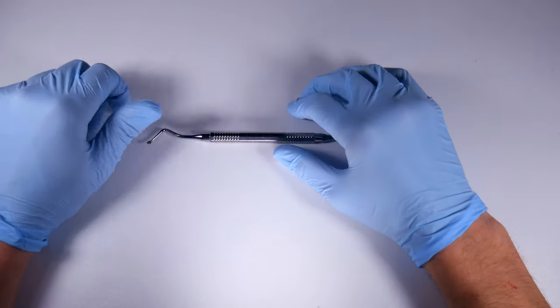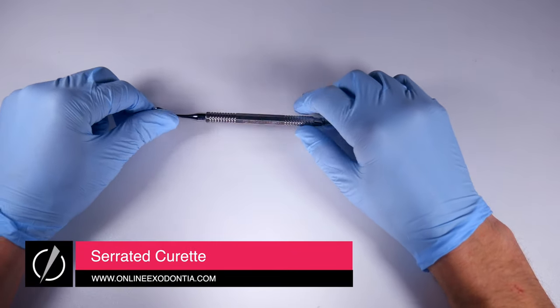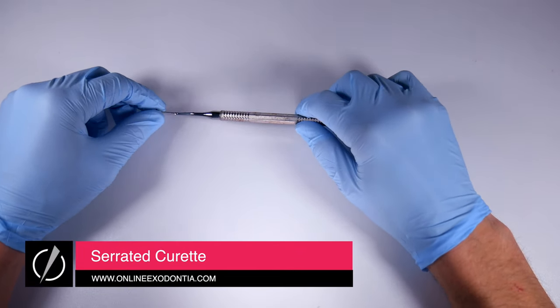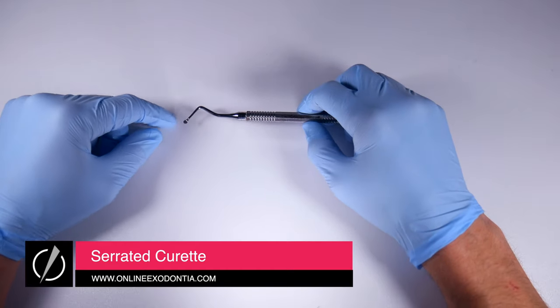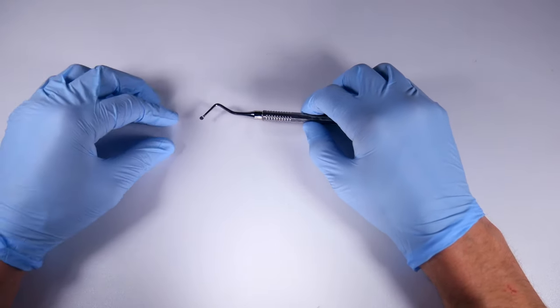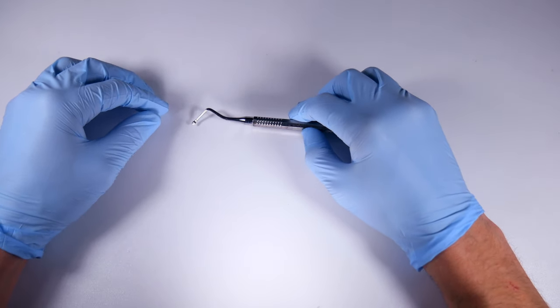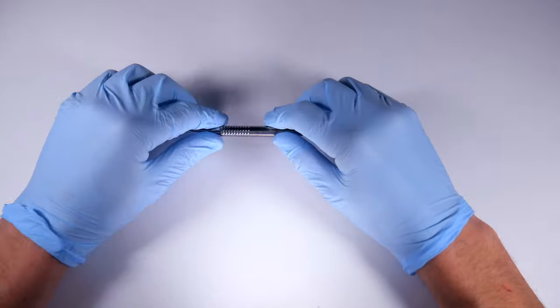This video is about how not all instruments are created equal. Going through dental school, I was shown a curette, and to me there was one curette and that's what you used. It worked okay, but I was never really amazed by it.